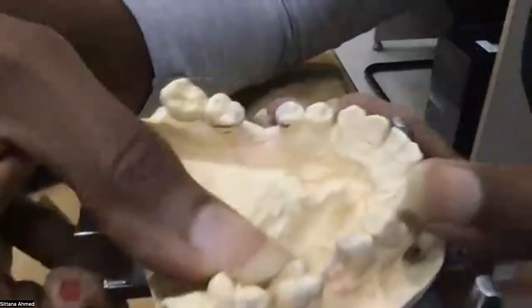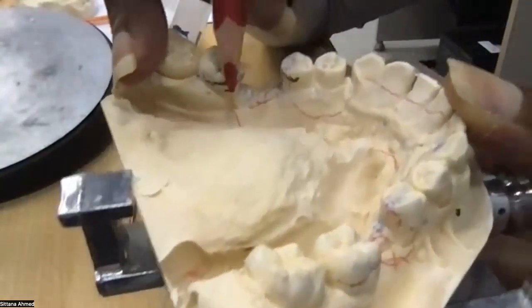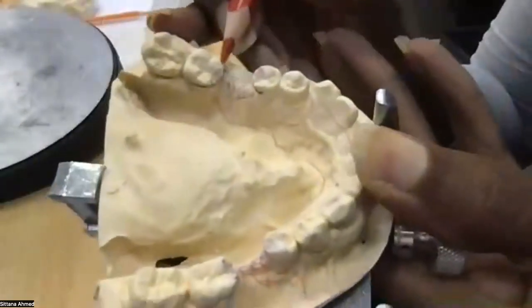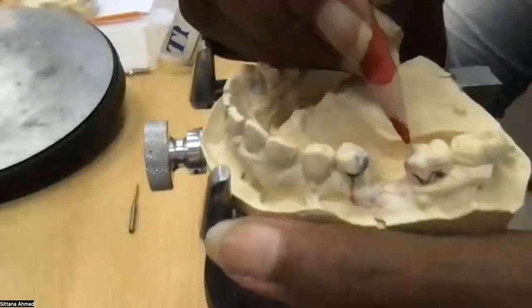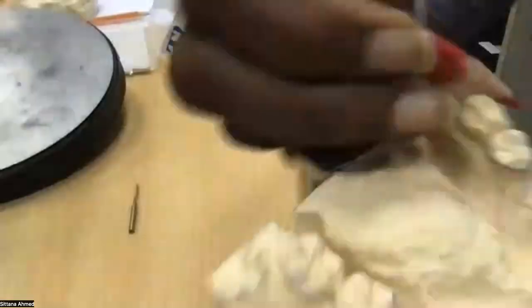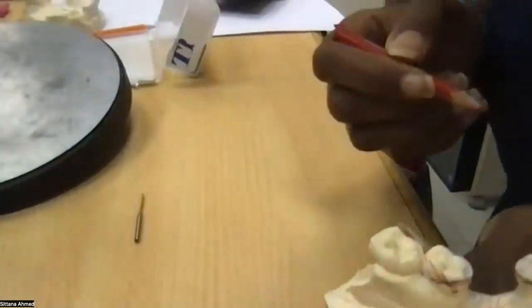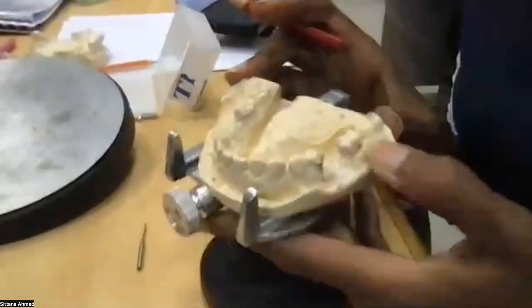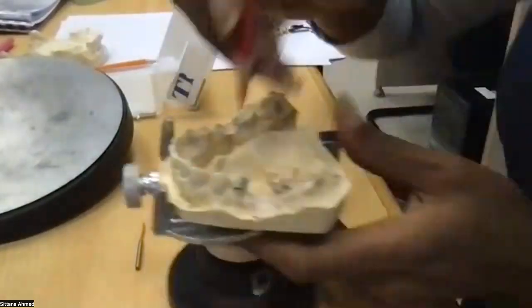Otherwise, as you can see, I have a big undercut on the same tooth linguomesially. So a very easy fix is I just change the clasp to a ring clasp, because all molars tilt proximally, and all I need to do is get the clasp going like that, and on the lingual side, it engages the undercut on this side. Ring clasp.